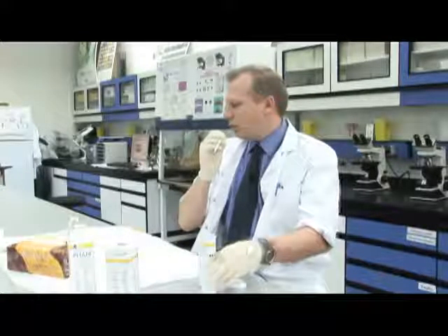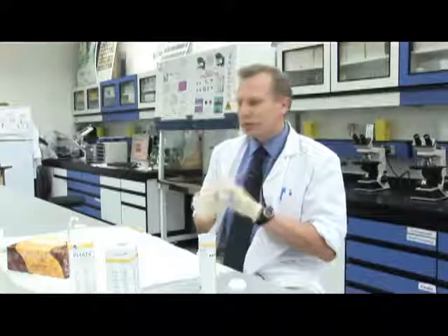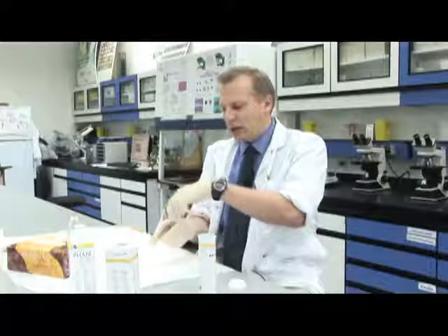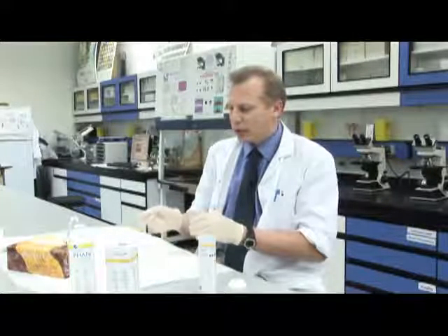I'm going to demonstrate the dipstick test on a couple of urine samples that I have here. We already know what to expect in the urine samples, so the test results should be a given, providing the strips are working okay. Of course, the strips being chemically based, they have a storage life, and it's important that we don't use them past the expiration date.